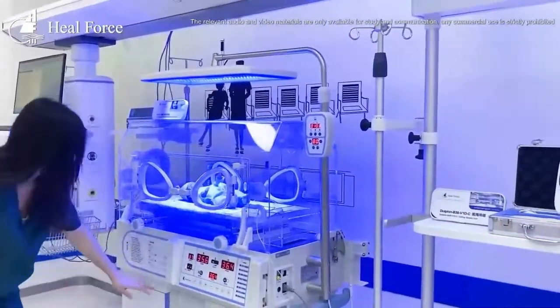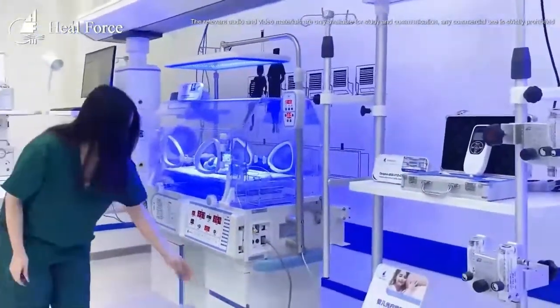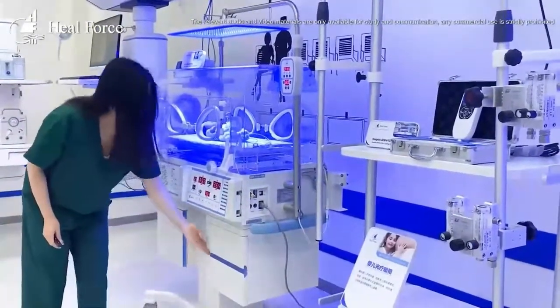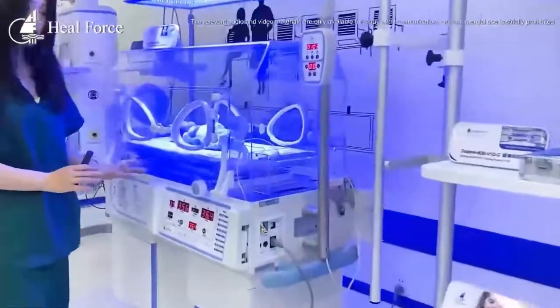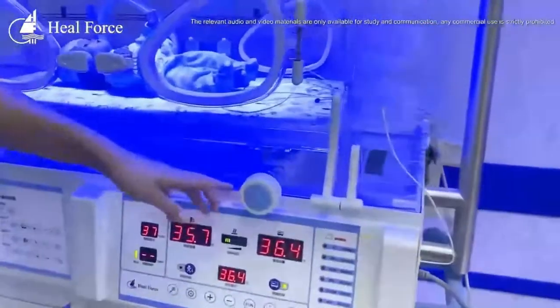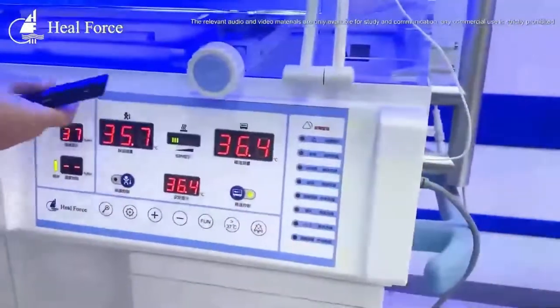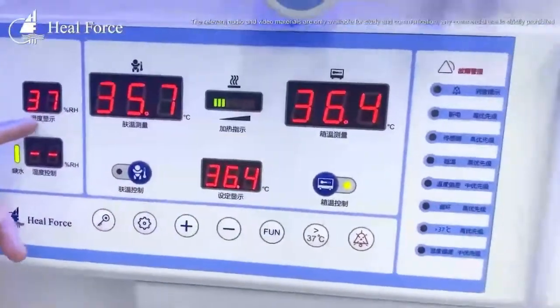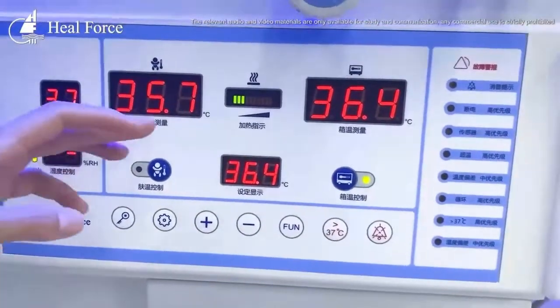We also have optional storage box cabinets. Coming to the important part — we have placed our temperature controller, meaning the heating elements, inside the incubator. This is our heat and temperature controller. With this screen, you can see different numbers showing the body temperature and also the humidity.